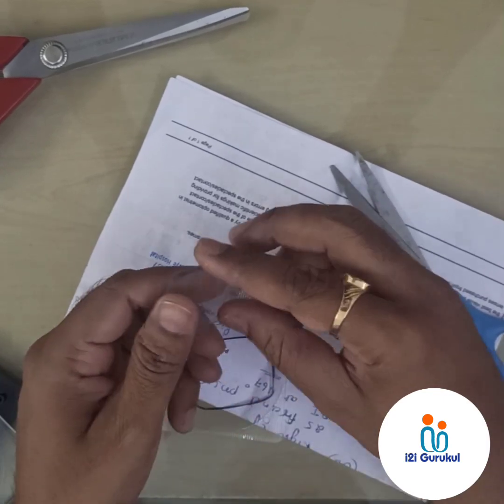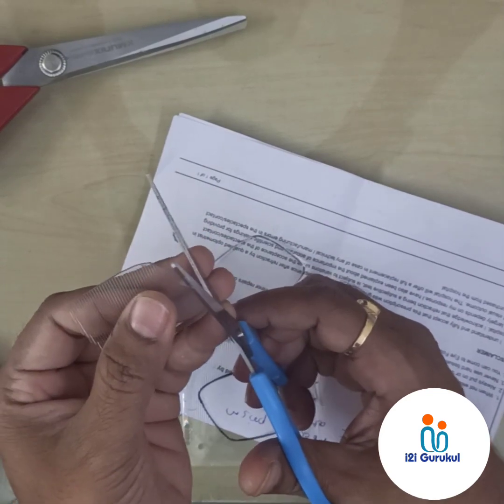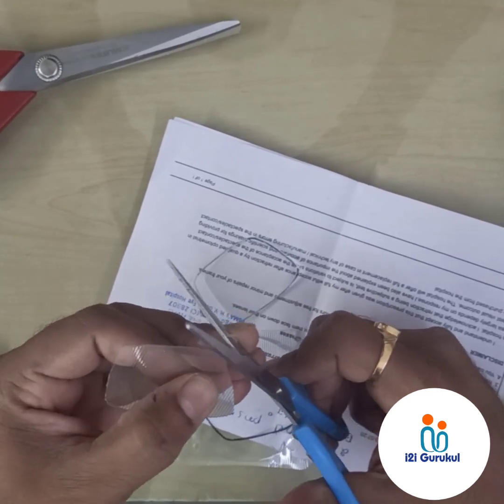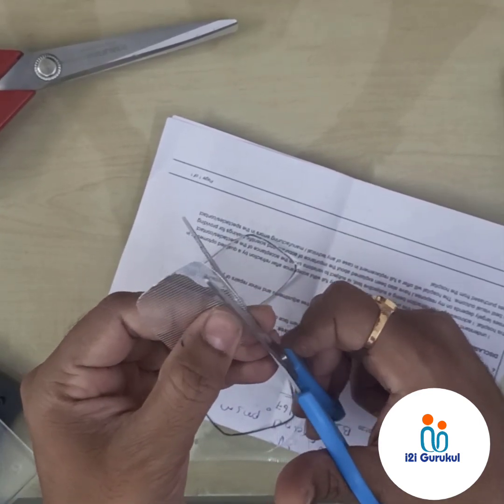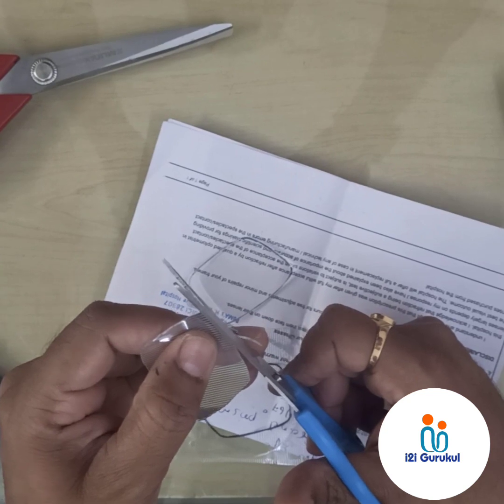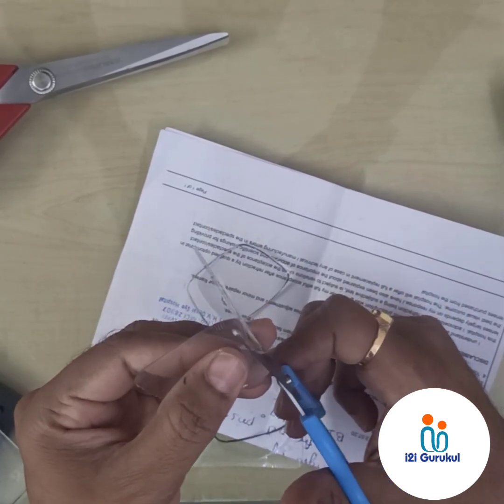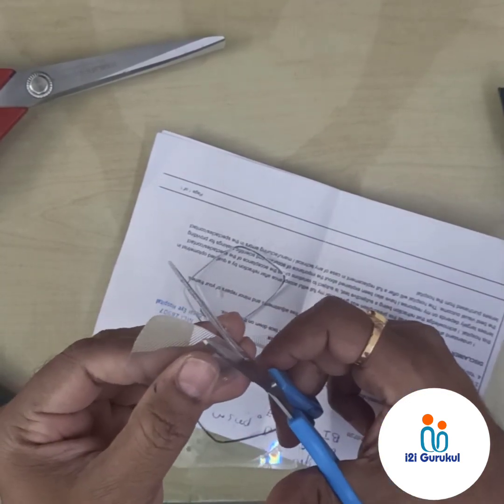Once you are done with cutting the Fresnel prism and refining the edges, please match it with the spectacle lens, following the bevel angle of that particular lens. This will help maintain adherence to the spectacle lens and keep it free from air bubble trapping. If you feel that further refinement is required, please go ahead; otherwise you will face trouble fixing the Fresnel prism, as even small air bubbles can cause visual disturbance and prevent proper adherence.